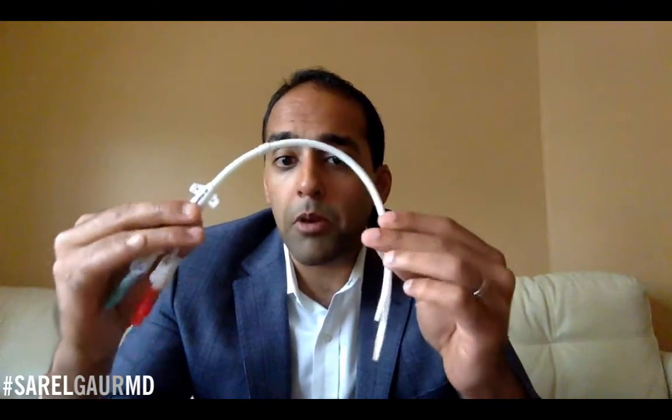This is the Permacath. All right, you can see it's a dual lumen catheter. It has this polyester cuff here. This is what allows tissue to ingrow into the device, keeping it permanent inside the skin. This device is a split tip design. All right, again, one lumen is used to remove blood at a high rate of flow, and the other lumen is used to return that blood back to the body after treatment. That's the main purpose of this catheter.